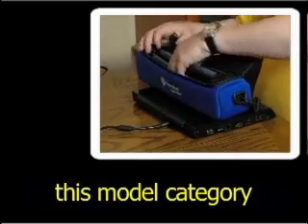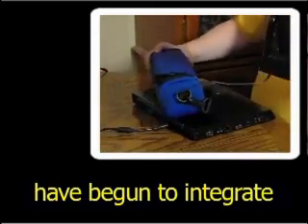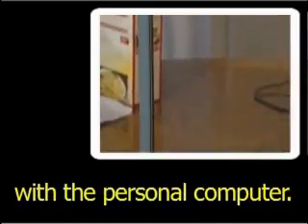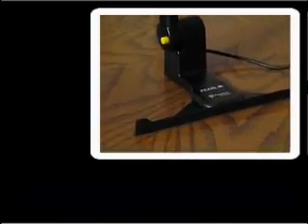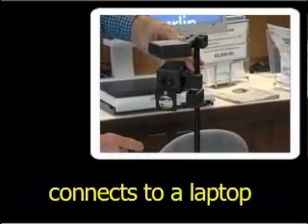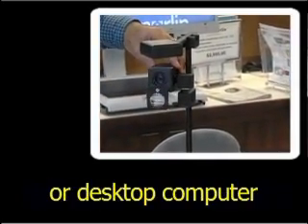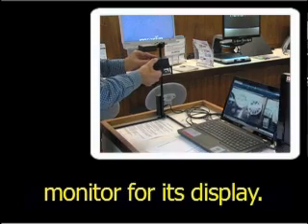Additional advances in this model category have begun to integrate the video magnifier with the personal computer. The system shown here connects to a laptop or desktop computer and uses the computer's monitor for its display.